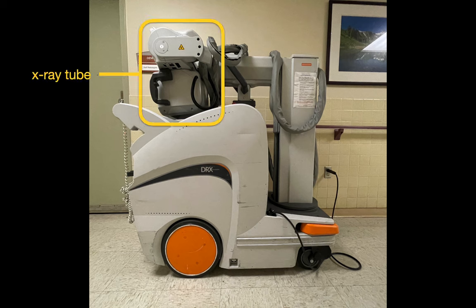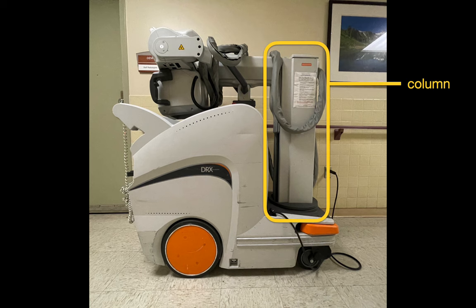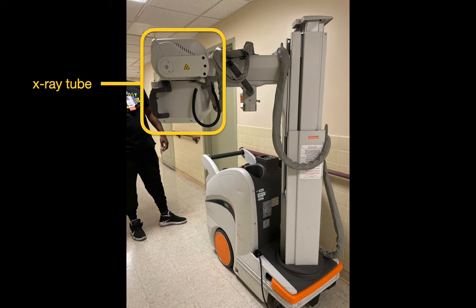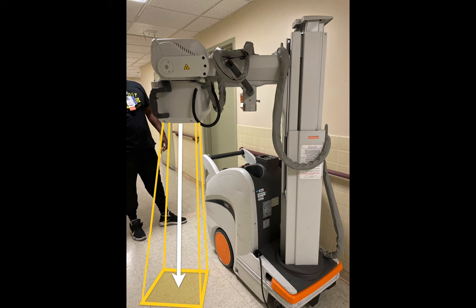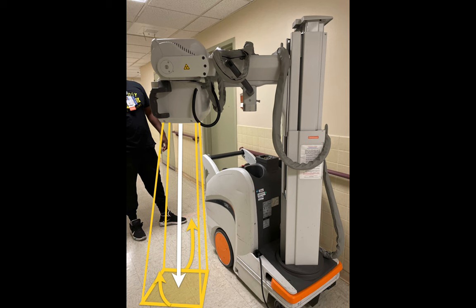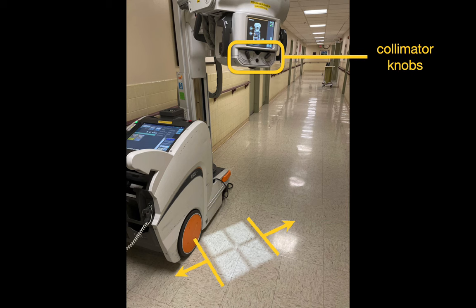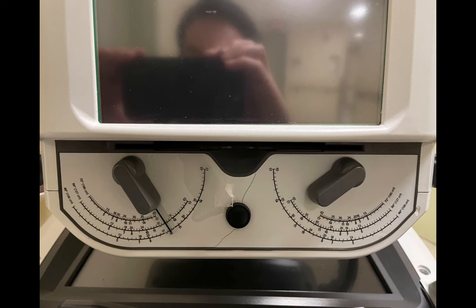Going back to the side view, you can see an x-ray tube that's mounted on an extendable boom, which is itself mounted on an extendable column that can be raised or lowered and can also rotate, which allows us to unstow the system. Mounted onto the extendable boom is the x-ray tube. The business end of the x-ray tube is pointing down in this image and we have three degrees of freedom in pointing the x-ray tube: pitch, yaw, and roll. The x-ray tube can fire both x-rays or visible light, which allows us to see exactly where the x-ray beam is pointed and how large that beam is. Collimator knobs allow us to cone up or cone down the width and length of the beam.